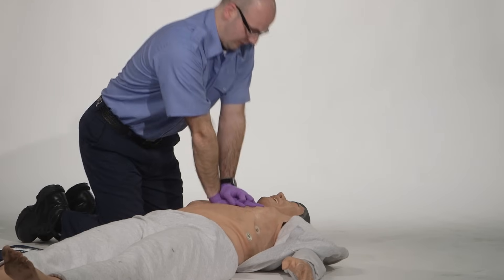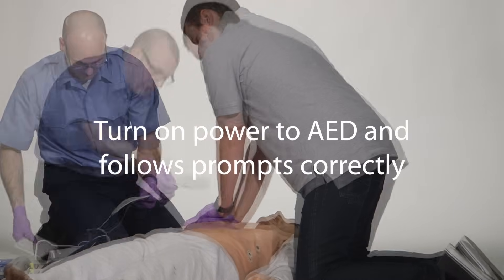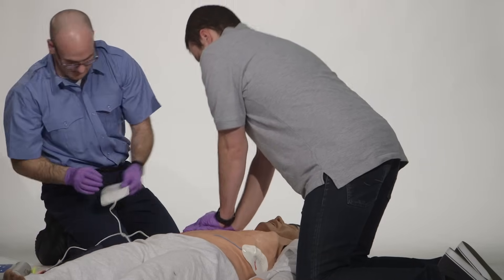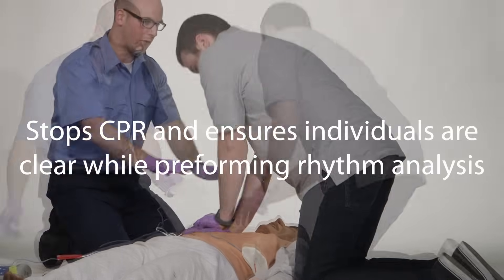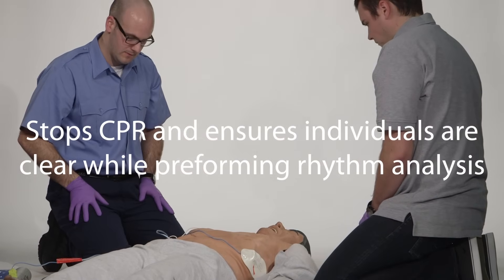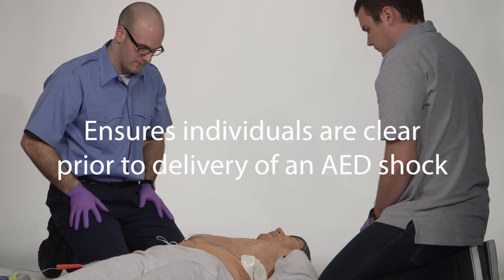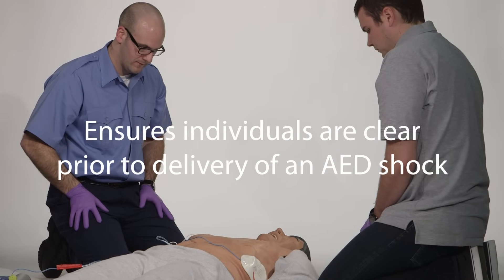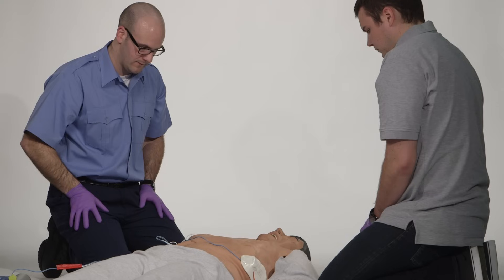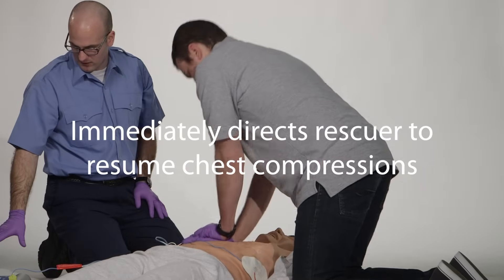The candidate must turn on the power to the AED, follow the prompts, and correctly attach the AED to the patient. Stop CPR and ensure all individuals are clear of the patient during rhythm analysis, and ensure that all individuals are clear of the patient prior to delivering an AED shock. Immediately direct rescuers to resume chest compressions.